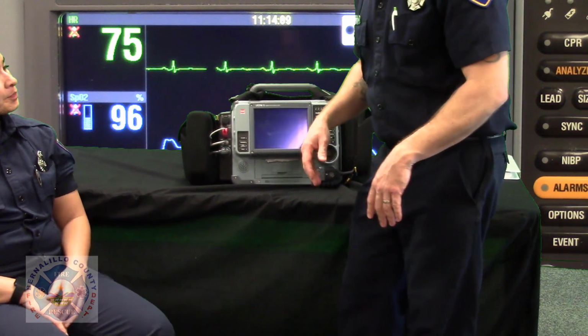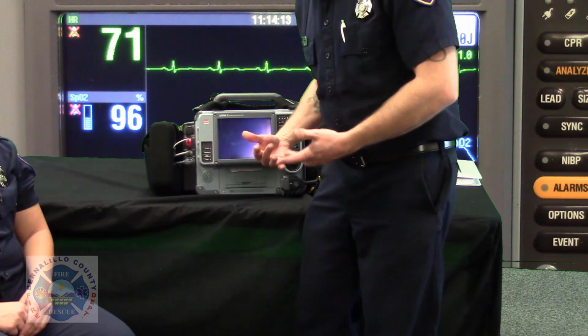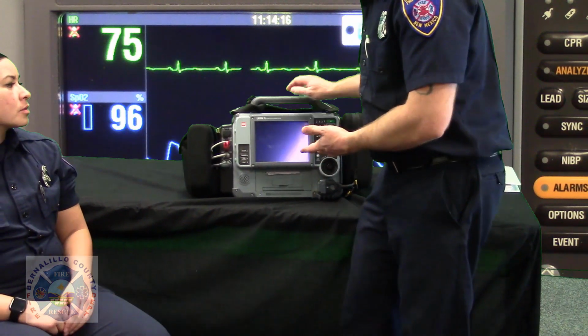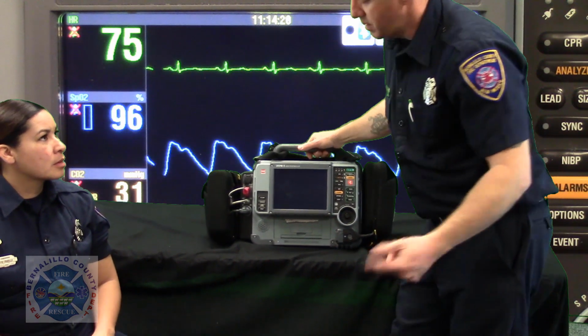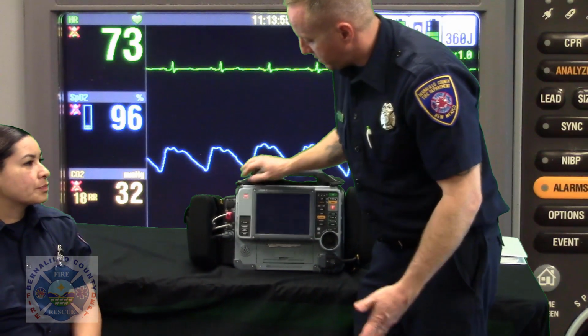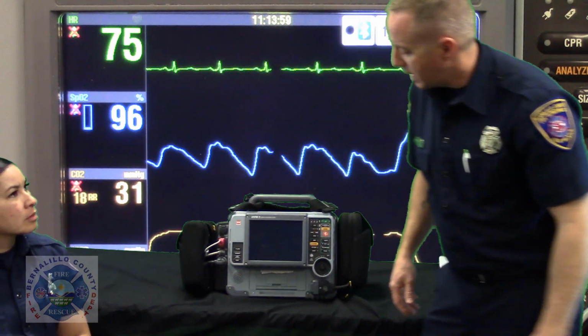It takes a lot, guys, to keep our equipment reliable, because you may be the next person that this monitor gets deployed on, perhaps for rehab from a fire, or worse, you get injured or something. So we want to make sure that these things are ready to go for us, ready to go for our patients that we serve. So do the best you can to take care of it.